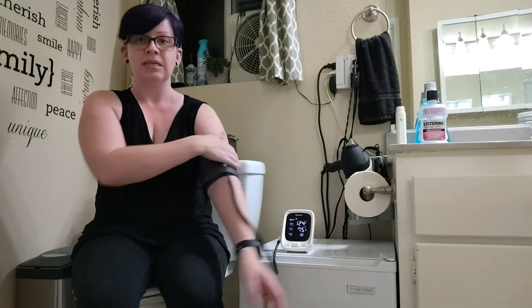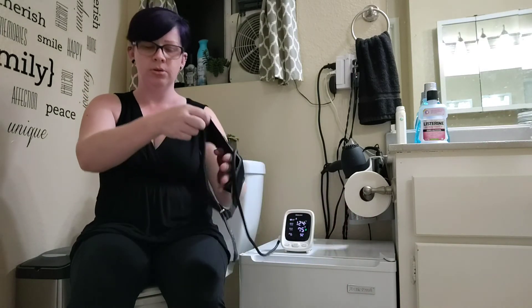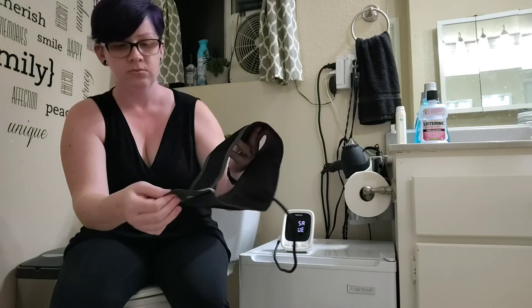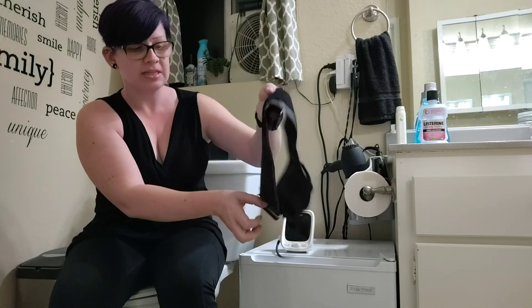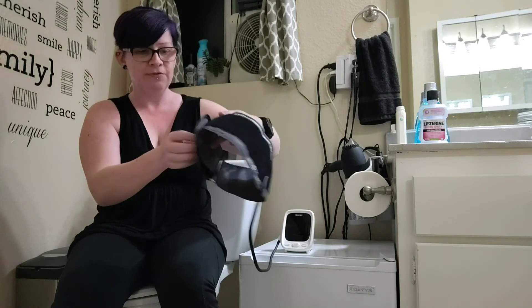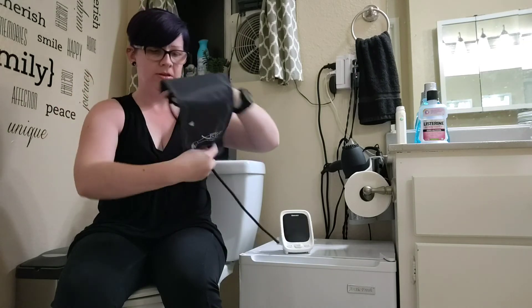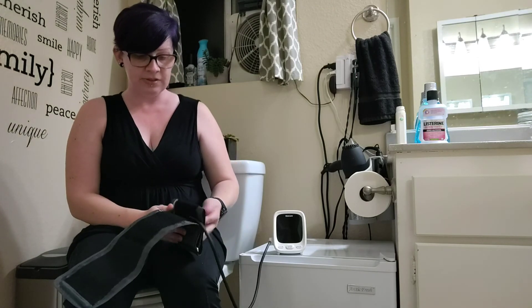I really like that it's easy to put on and take off by yourself with no help. There's a little smushy stopper in here so it won't easily come undone, and it can fit a very large or very small arm — it's a good generic-size cuff that's going to fit skinnier and heavier patients alike.